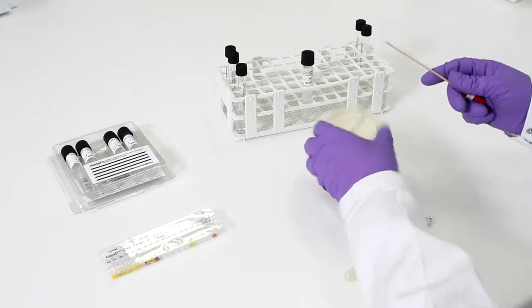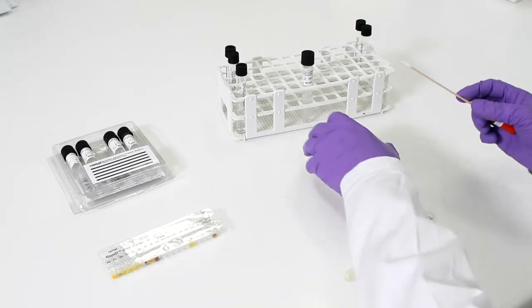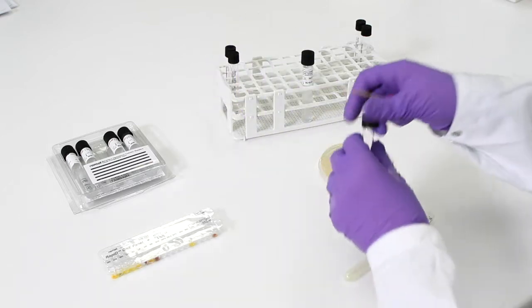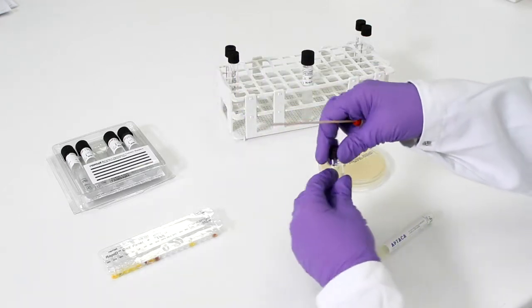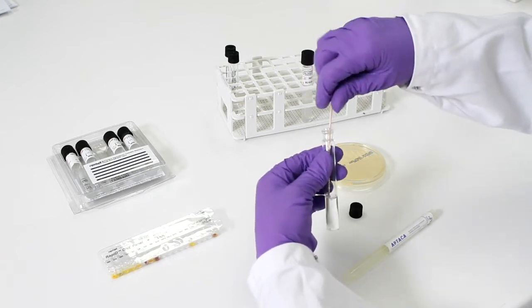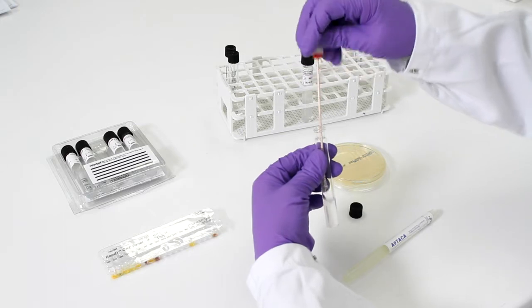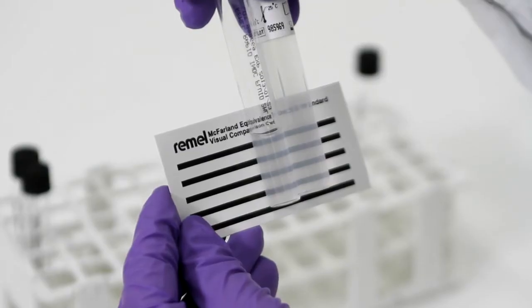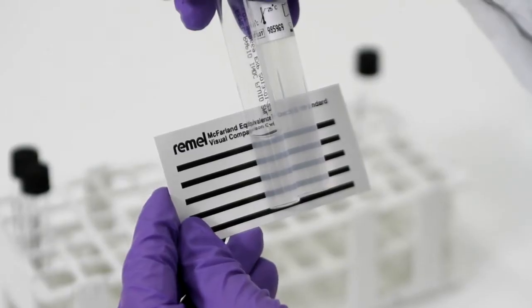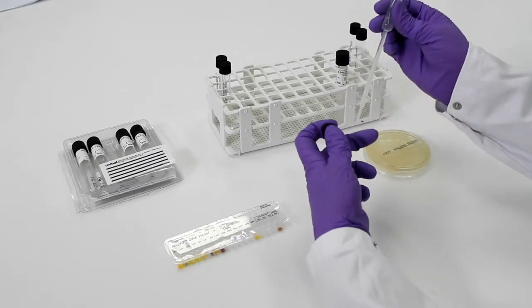Prior to identification, the organisms must be grown in a pure culture and examined by gram stain. Getting the correct suspension is important, and turbidity varies depending on the kit. With a cotton swab or inoculating loop, suspend sufficient growth in the inoculation fluid using the correct McFarland turbidity standard for reference. Using a pipette, remove the contents from the tube.